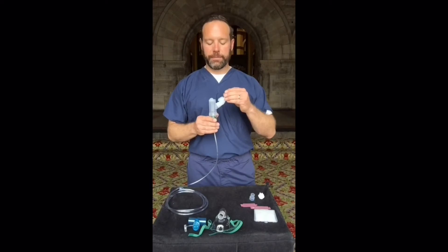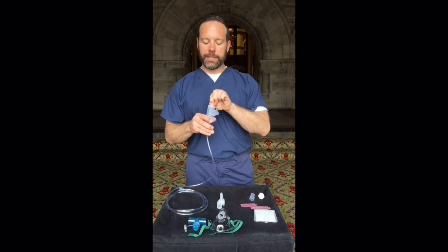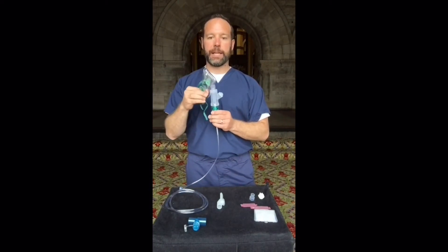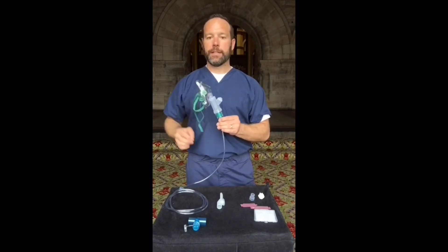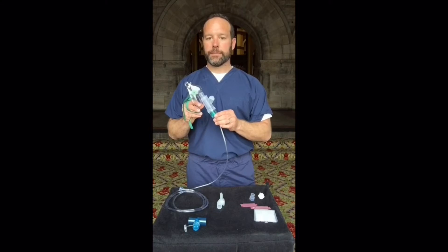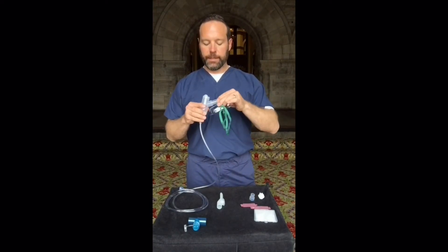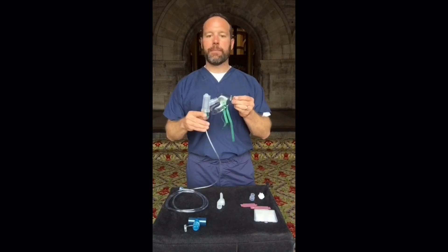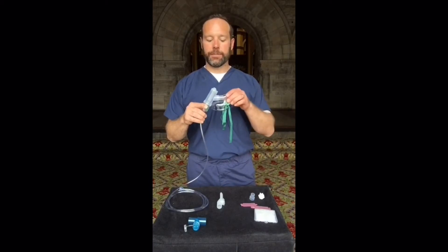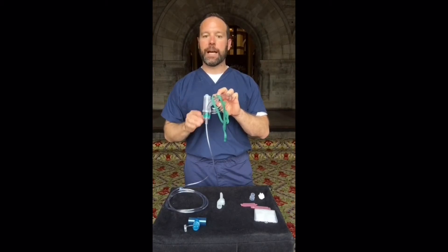If you have a patient that cannot tolerate a mouthpiece treatment, remove the mouthpiece and set it aside. Take the inspiratory valve from the top to the side of the Nebutek. Take any conventional aerosol mask and place directly into the Nebutek — it should press fit firmly and snugly into the device. If a patient is reclined, they may take the Nebutek treatment reclined. If a patient is reclined further and the Nebutek is sputtering and not functioning well, replace the inspiratory valve to the top and place the mask into the side port position. This will allow a patient to be completely reclined and still take their aerosol treatment. You can also rotate masks to accommodate patients in a side-lying position while still allowing the tower of the Nebutek to be upright.